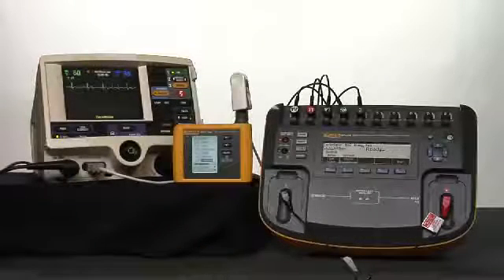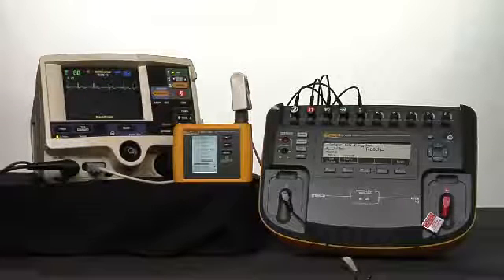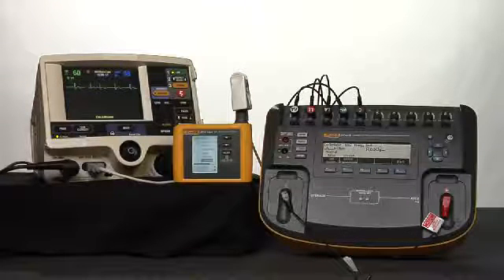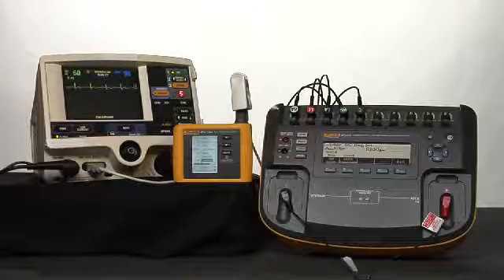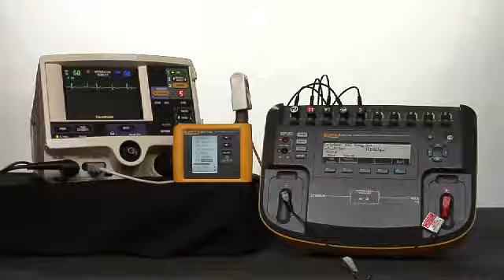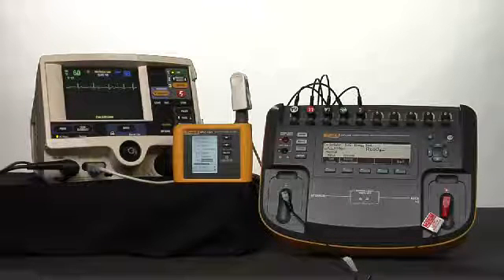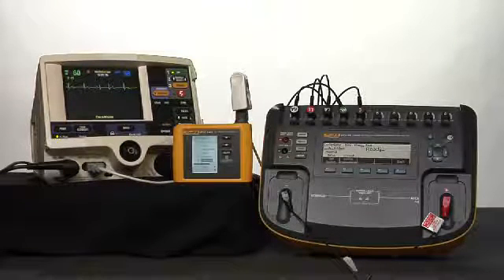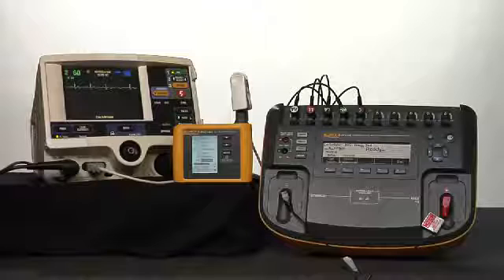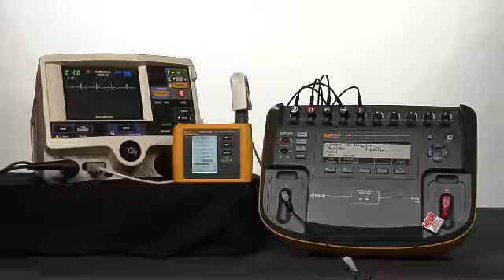Introducing Spotlight, the SpO2 functional tester that's the newest member of the ProSim family, and its use with the Impulse 7000 defibrillator transcutaneous pacer analyzer. We're going to test a defibrillator that has both pacing and pulse oximetry built in, as well as shock advisory in an AED mode. My friend Jamie Smart will read the manufacturer's recommended tests and I will perform them using Spotlight and the Impulse 7000.